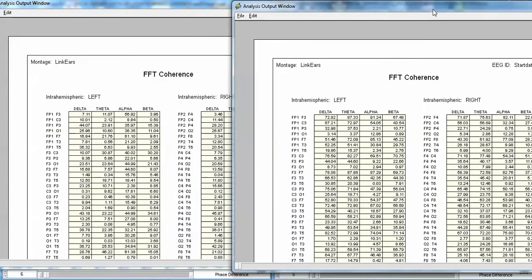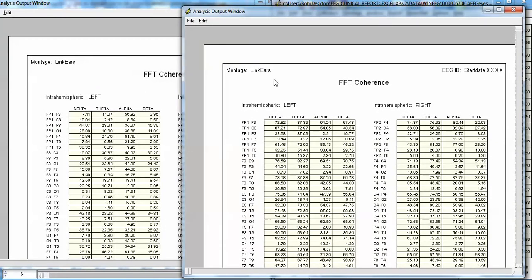Let me compare the two. For example, coherence for FP1-F3 is 7 in the original versus 72.82 in the reconstructed. If you go through each of these numbers, this data is available for download so people can verify it themselves. Or they can get their own data, put it through WinEEG, do ICA reconstruction after removing eye movement, save the EDF file, launch two NeuroGuides, and then compare them. Every single time you do this, you will see complete adulteration of the phase and the coherence.